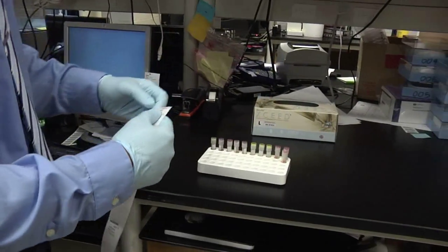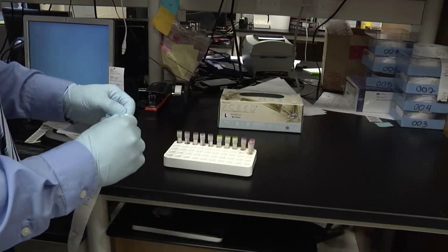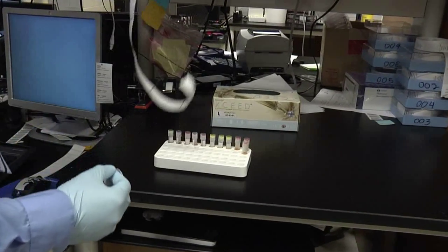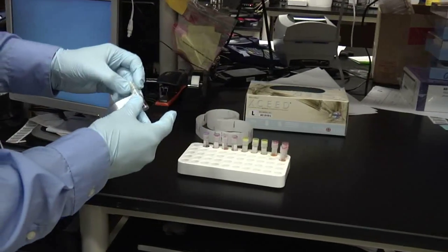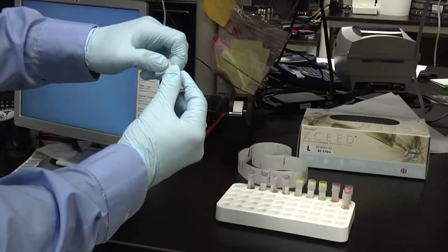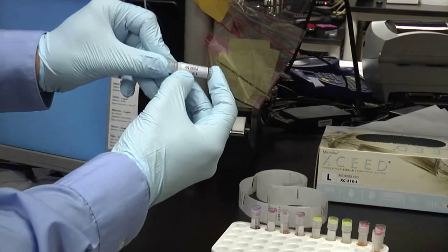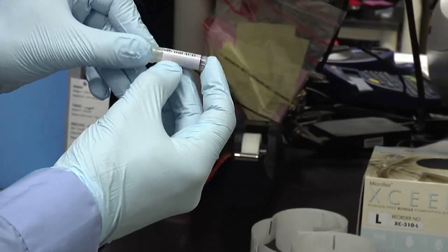Start removing each label and placing it onto the vial. The vial will have the barcode, the location of the tube, and what's inside the tube.